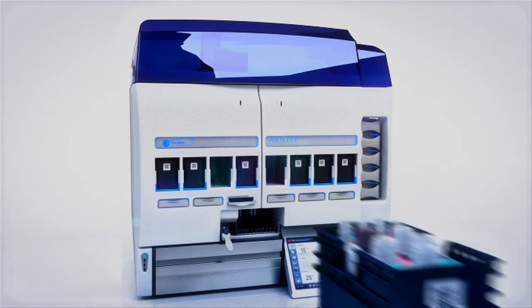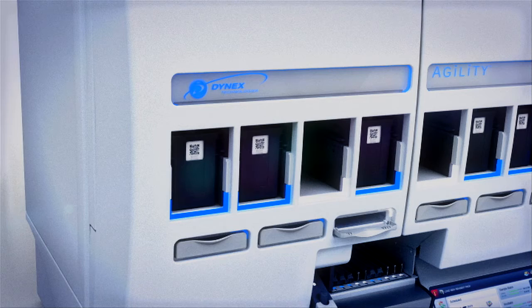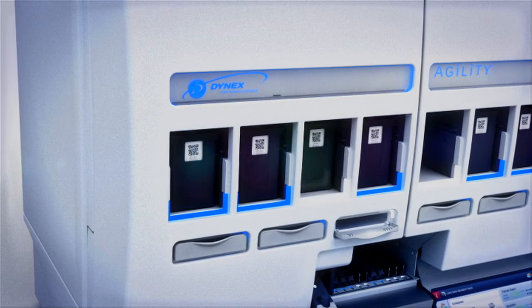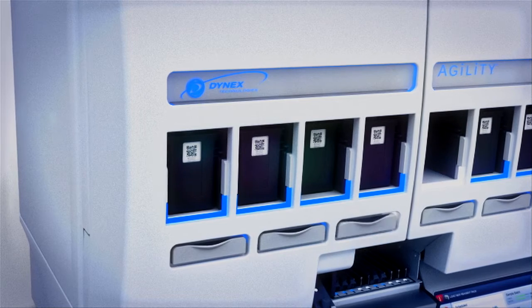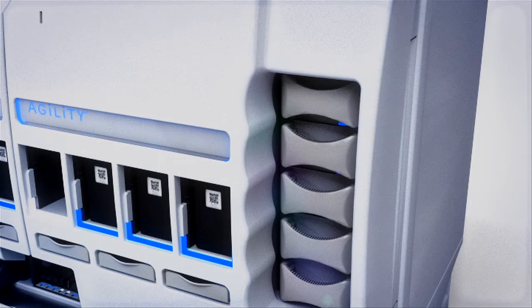Agility uses illuminated color-coded access positions, allowing simple loading of all reagent packs, tips, microplates, and other consumable items.